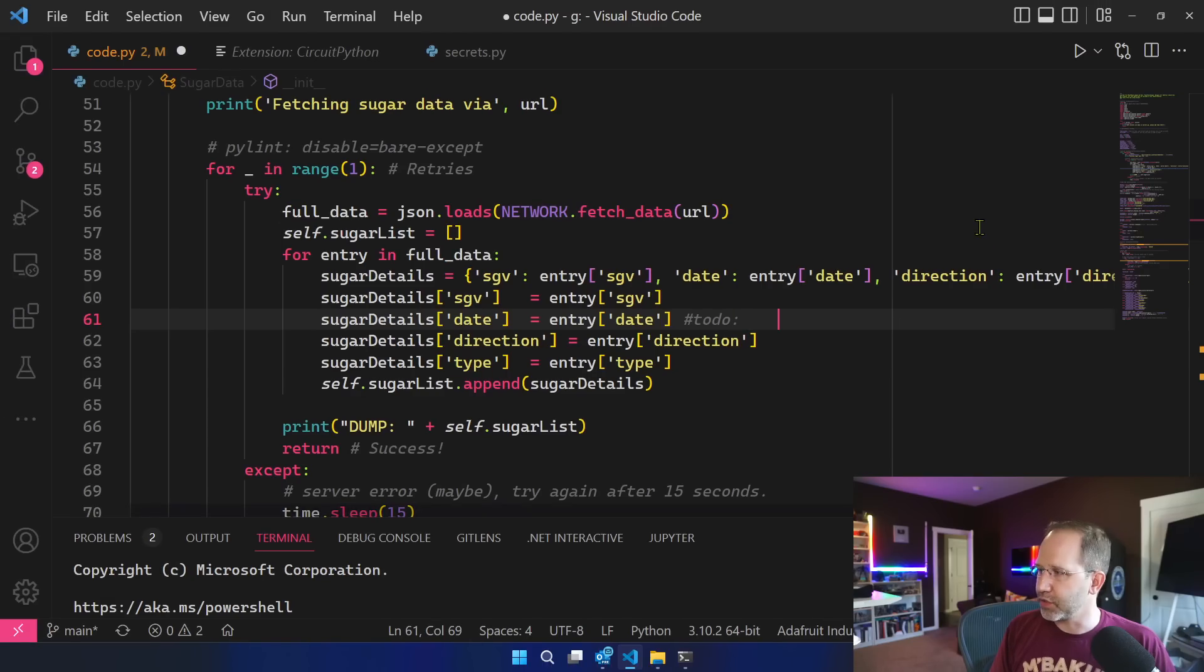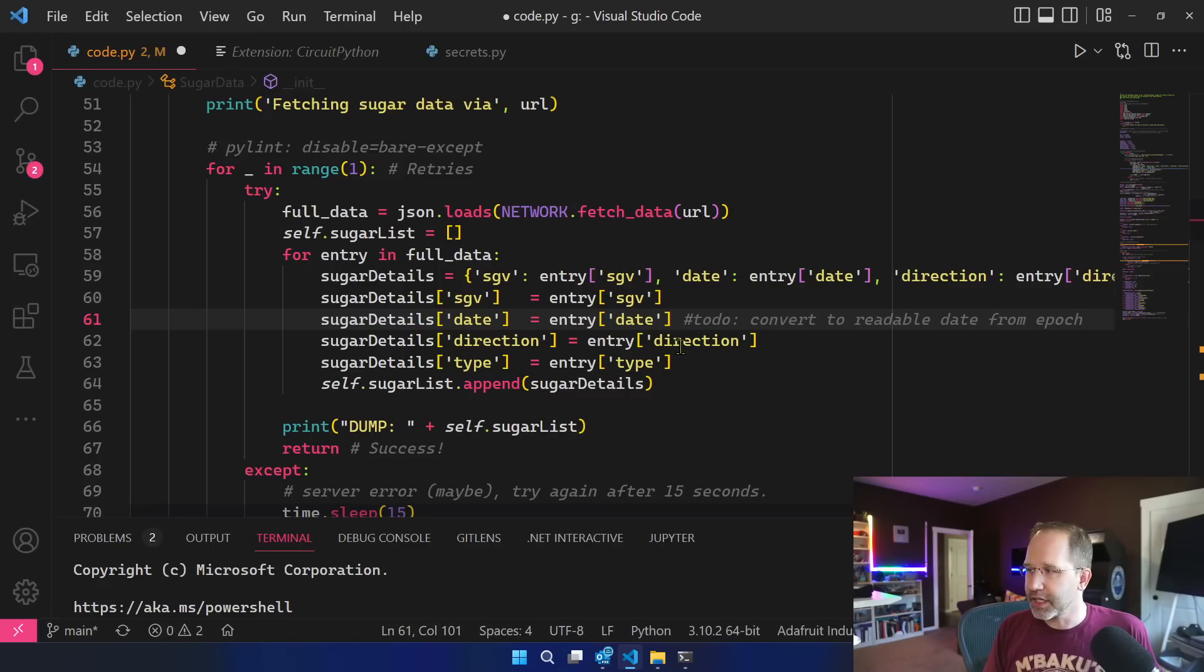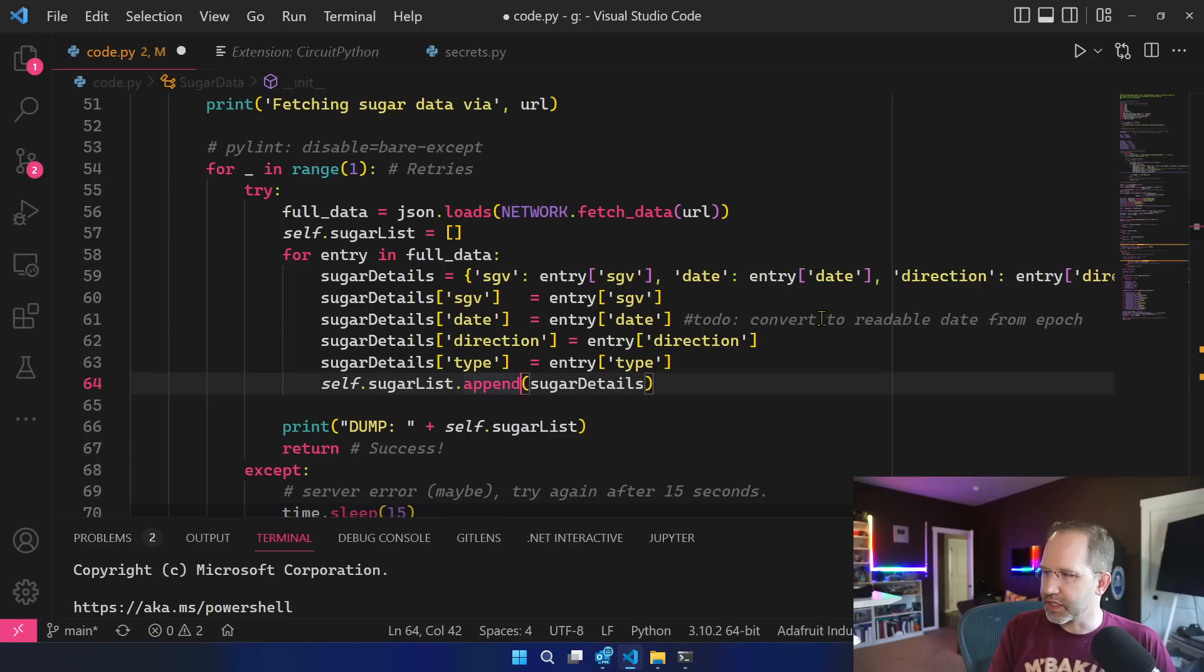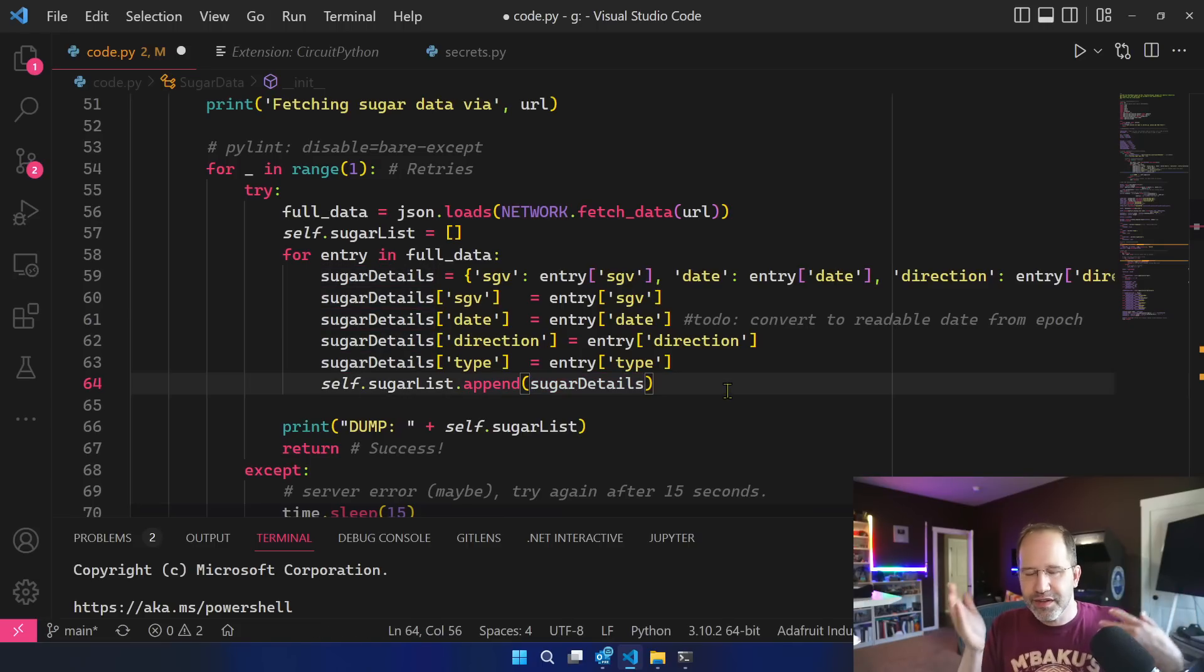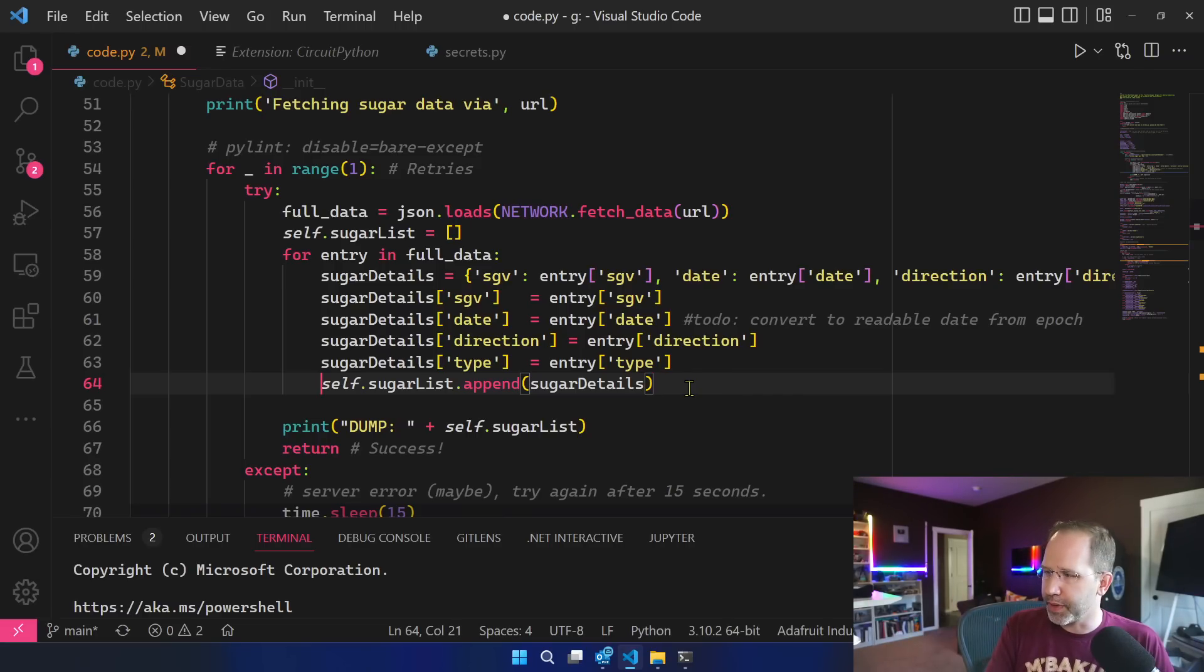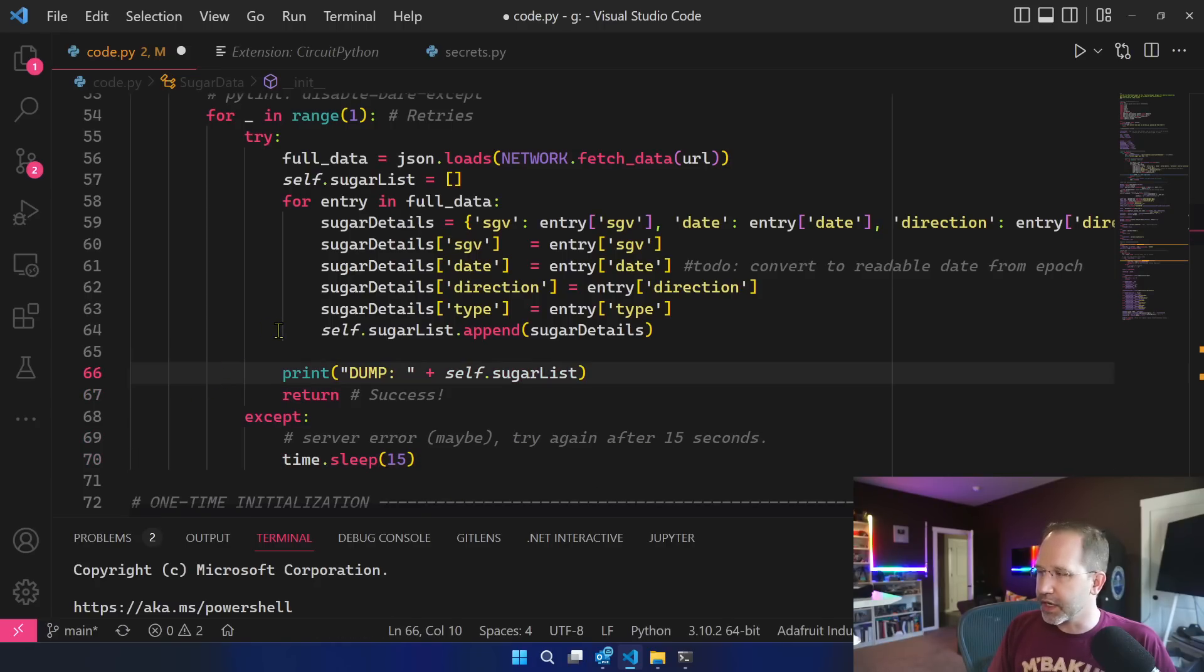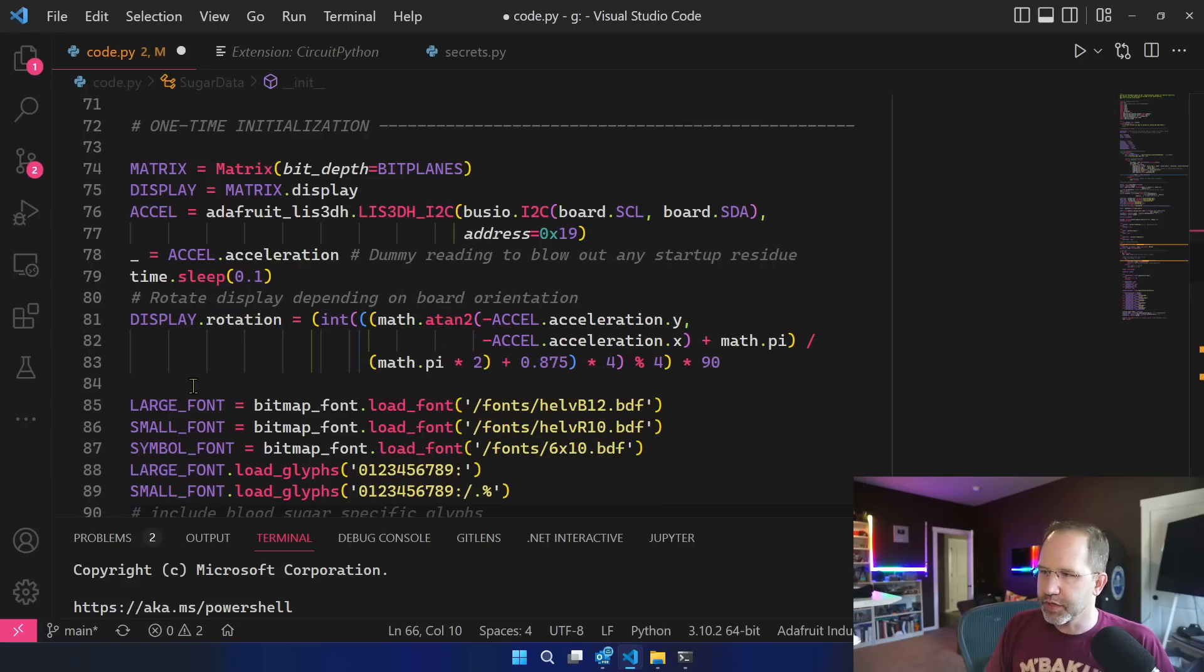To do... oh, oh look at that! Oh freaking Copilot, look at that! Oh they actually were writing the comment for me. Yeah, yeah, yeah from epoch. That was creepy. Not opacity, epoch. Yeah, it's so cool. It's basically like yeah you probably meant that. So that's cool. So now I have this list filled with objects that are shaped like this. Again I don't really know in Python the right way to do that. Like in this case it's kind of a dictionary of stuff. Should it be strongly typed? Should it be not strongly typed? I got to get my brain in that more chill Python vibe. Then I print that out and if it doesn't work, well maybe it's a transient error. I'll try again in 15 seconds.